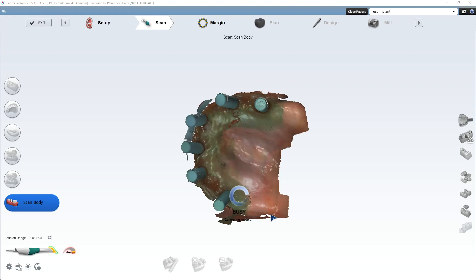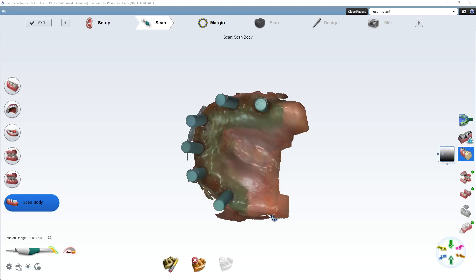We'll just, you know, open STL export these suckers into Mesh Mixer and we'll see. I'll try to show you guys what I'm talking about. Why it's important. So yeah, so there's the model.